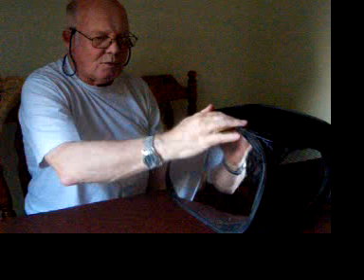Then I lay my palm flat on the table and start stretching my fingers. I feel as if my left hand is doing this. This has happened over a period of three or four weeks, so now I have this feeling that my left hand is doing something. I do this one for ten repetitions.